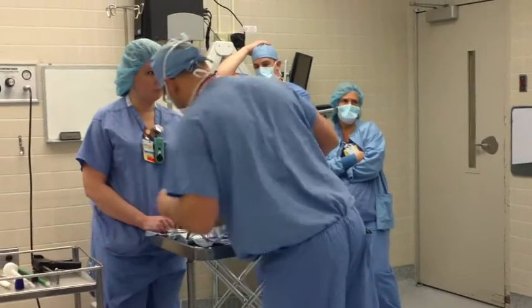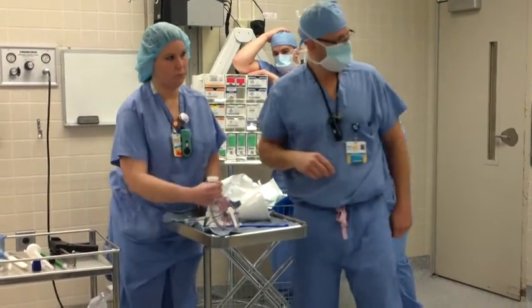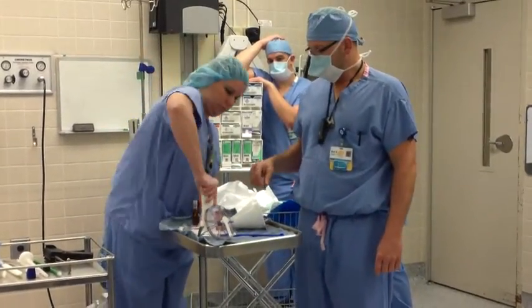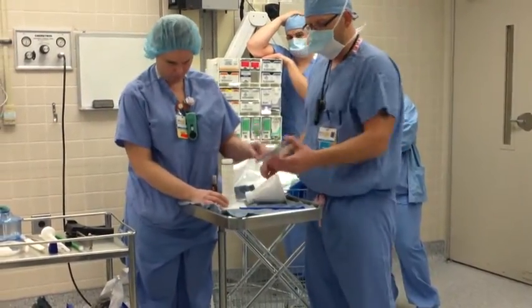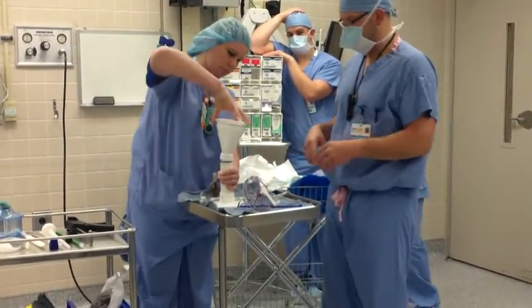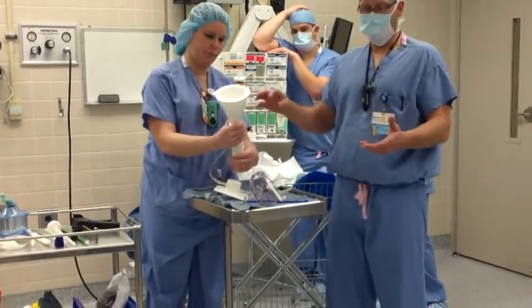Can you make sure that they know as soon as he hands it back to them, they take it out and take it off the gun? Because we've had people leave it on the gun and now it's glued. So a couple things — the top of this threads in. What I try to do is keep the mess down. Once this is out, we're going to go over the steps of the pressurizing and mixing because it's kind of confusing. You can leave this laying wherever because it's all going to be disposed of.